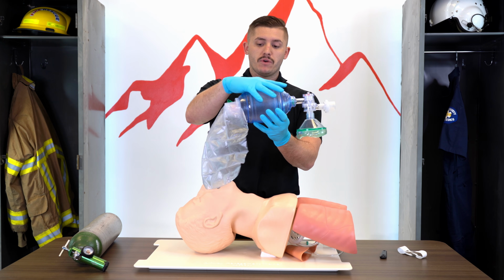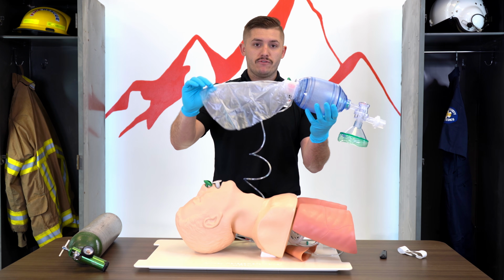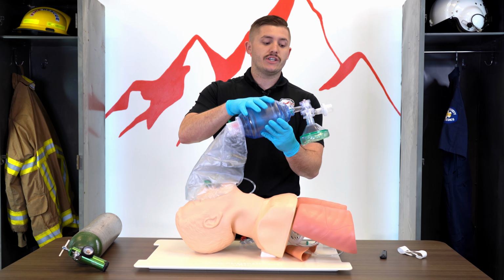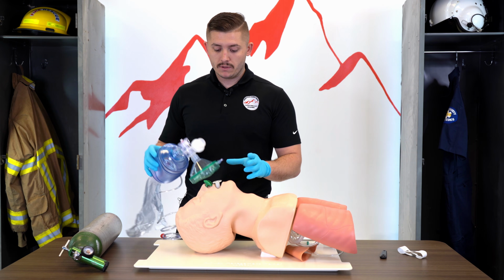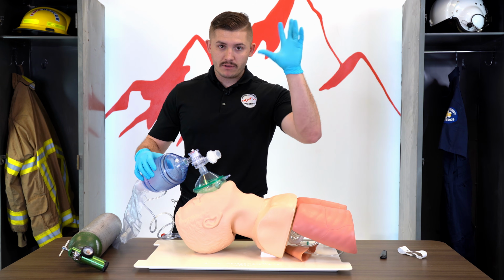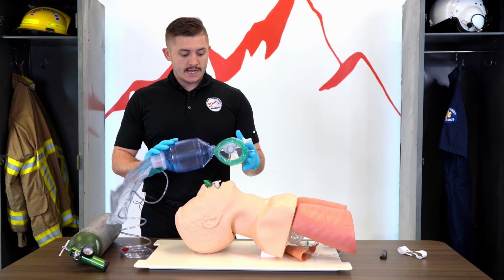Once this fills up with oxygen, it's going to backflow into this. Like with the non-rebreather, we have to pre-fill that reservoir bag. With the BVM, we do not have to. So place it on oxygen and begin delivering breaths. In a lot of departments, a lot of protocols, it is acceptable to give a breath with our atmospheric air, then plug in to oxygen and continue giving breaths.